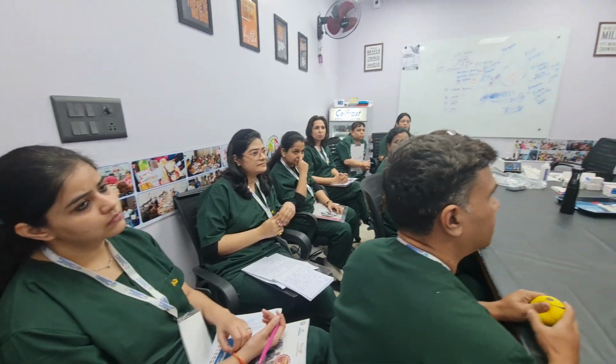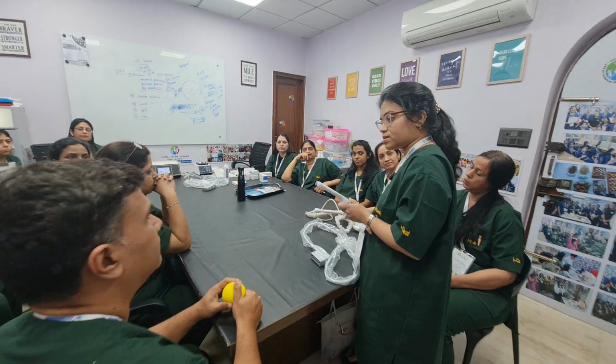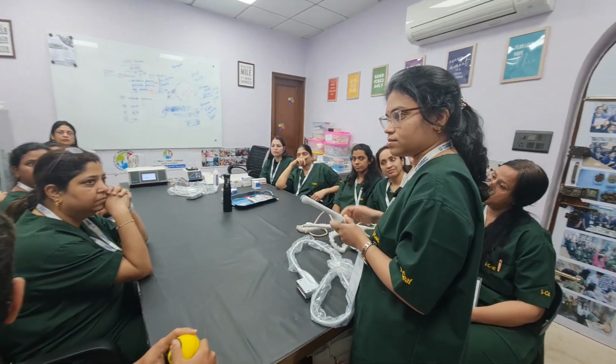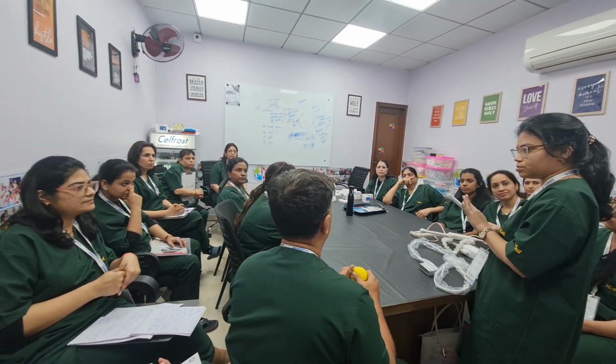Ma'am, what is the major difference between 3D and 2D probe? Is there any situation in which 2D can help us instead of 3D? 2D is mainly used for the diagnosis of any pathology, but 3D helps us in confirmation of the diagnosis from the 2D. So 3D is always superior, just in confirmation, but everything can be performed with 2D also.